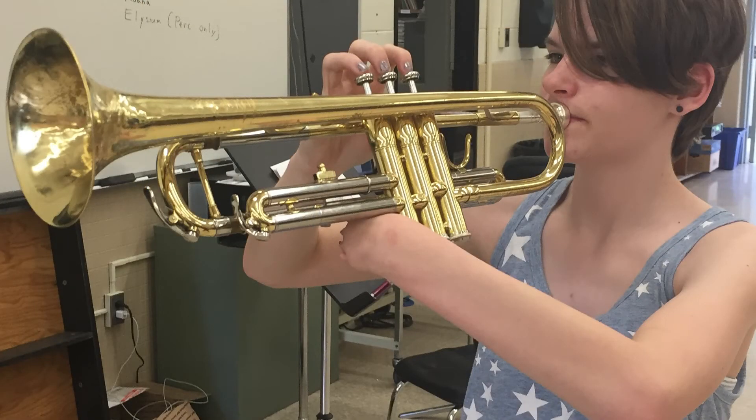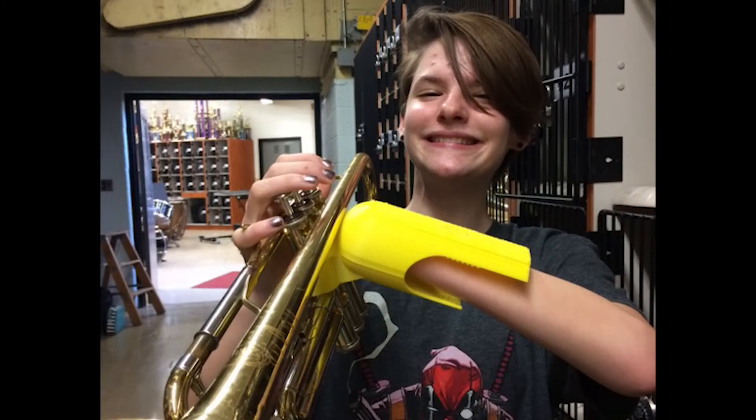It's working pretty well — it's working, and that's the important part. It could be working much better on many different levels, but it's working to a degree where we feel satisfactory. Of course, you should never be satisfied with satisfactory. It's pretty comfortable now, but it causes some pain because after a while it gets kind of heavy, and you have to use more pressure sometimes, which isn't great. It was really nice — I didn't expect it to go all the way through and work as well as it had, but knowing that it did, it's a really cool feeling. It makes me feel really good to be able to help someone do something in a more efficient way than they could before. They put a lot of work into it, and I was really shocked — I didn't realize that my friends cared about me that much.